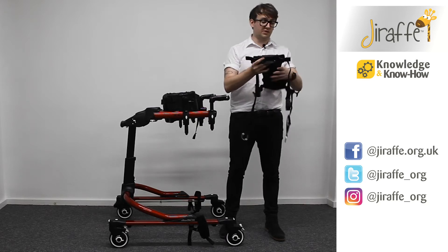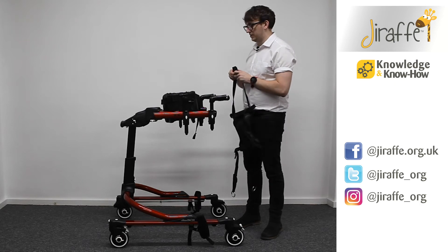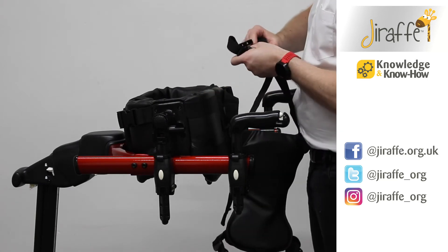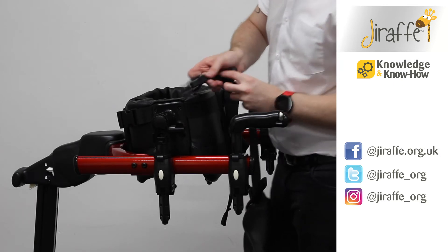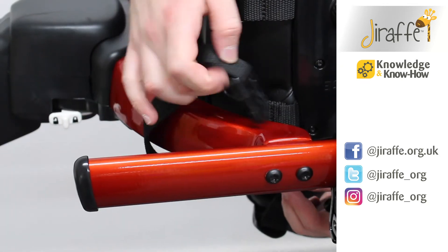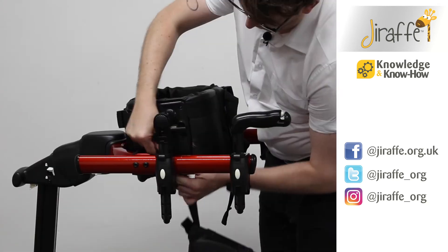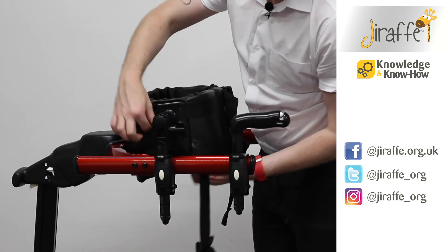If we fit the front two first, there are a couple of different positions that we can attach them to. We can either attach them to the frame itself or to the chest prompt.